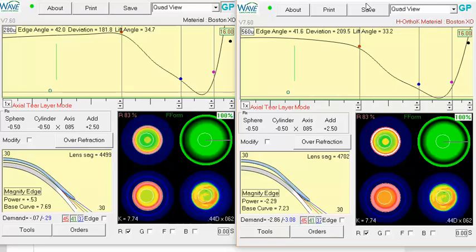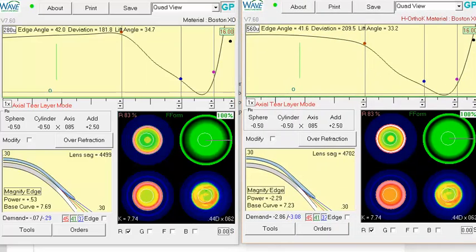Now you also asked about trying to open up the fourth lens again in a new design. The easiest way to do that is to click on the WAVE icon like you're starting a new design and click the use the last lens option, starting from the last lens.